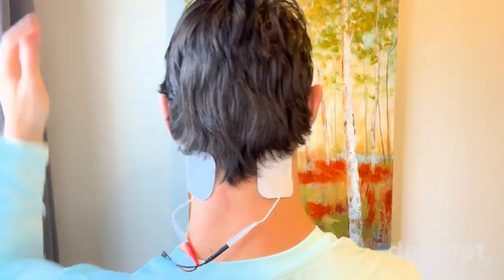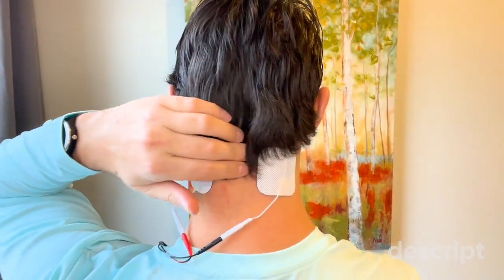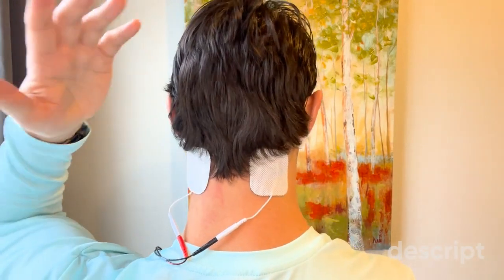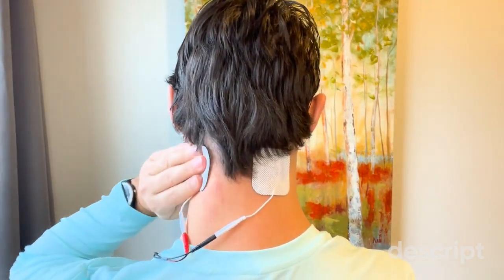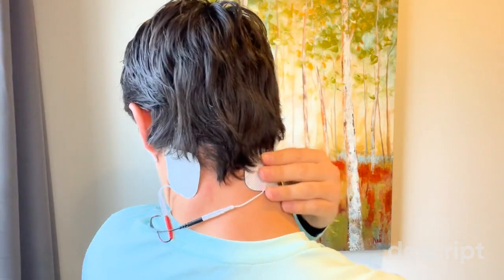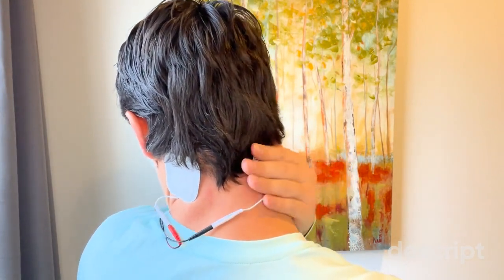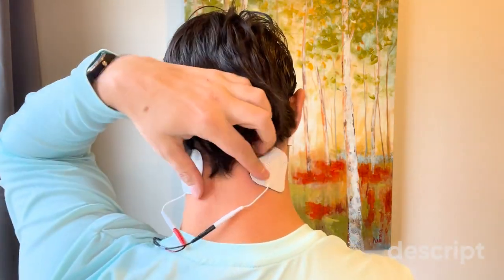Now I've applied my TENS. I came down the back of my head, felt the first spinous process, and my electrodes are on the back. It's hard to do this by yourself — I had to use a mirror and took a couple of pictures, but by the feel of it this one is good. This one's probably a little too close, so I want to move it over a little bit to get a little more on the lateral side.